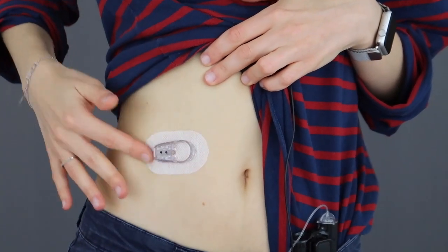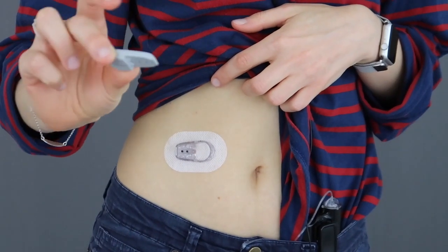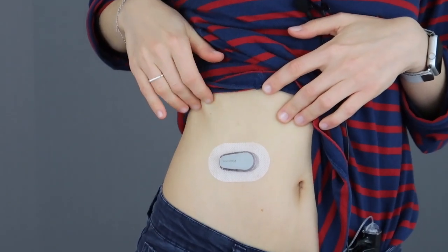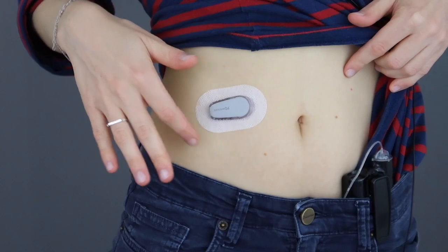So you can see — that's what it looks like. I'm going to go ahead and clean off the transmitter; I've swabbed the transmitter with an alcohol swab, which is what it told me to do. And now — we're on. Wow, that's what Dex looks like. So we're back up to eye level. I have my sensor and my transmitter attached to it on my stomach. I'm just amazed I didn't feel that insertion at all. When I clipped in the transmitter I did feel something underneath the skin — it didn't feel painful, but just a feeling like, oh yeah, that's something there. Worth noting.